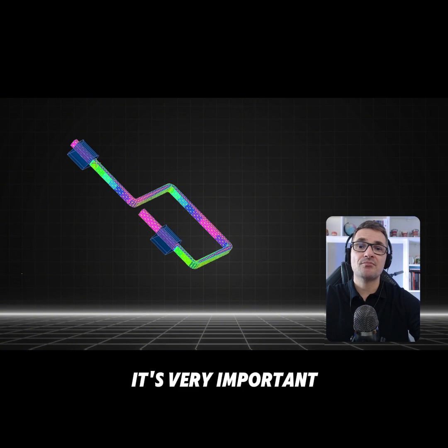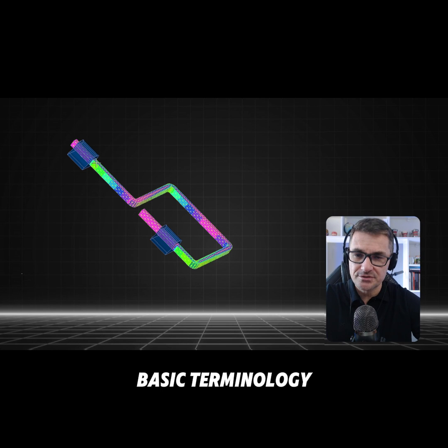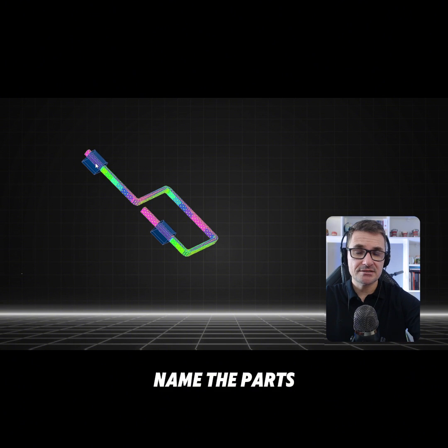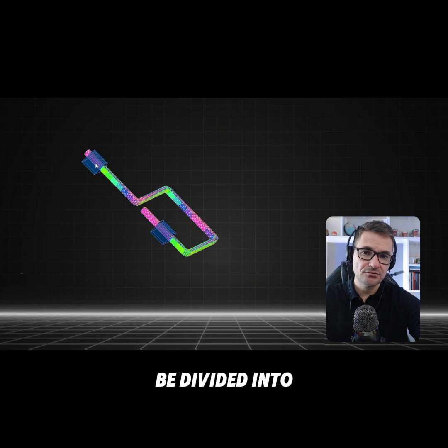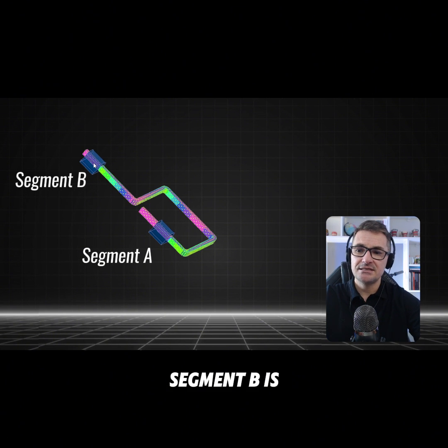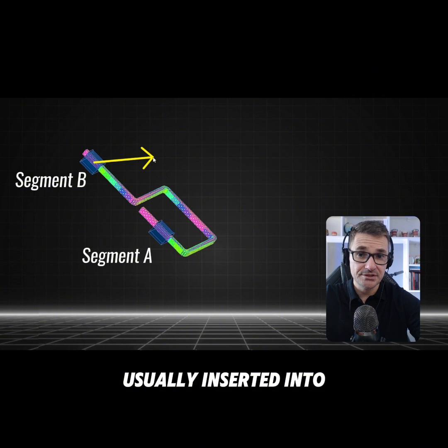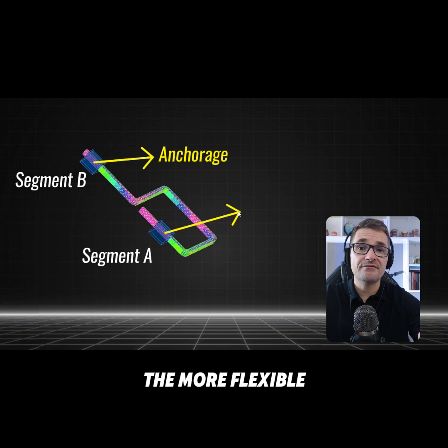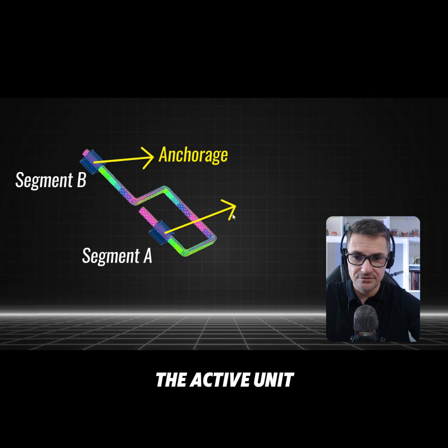First, it's very important to understand the basic terminology associated with the rectangular loop. We need to name the parts and the angles of the loop. The parts can be divided into segment A and segment B. Segment B is the less flexible part of the loop, usually inserted into the anchorage unit. Segment A is the more flexible part, typically inserted into the active unit.